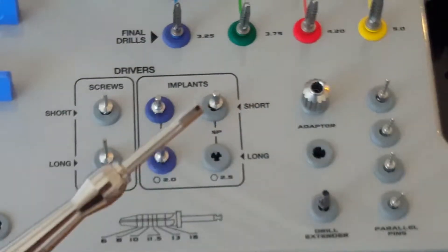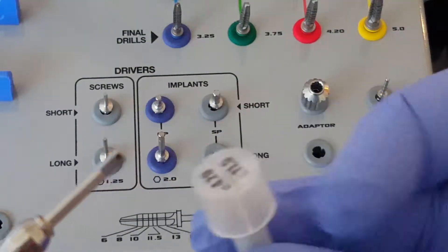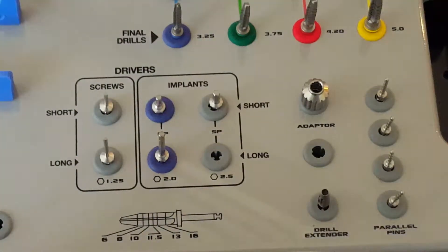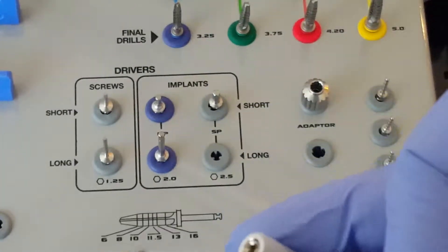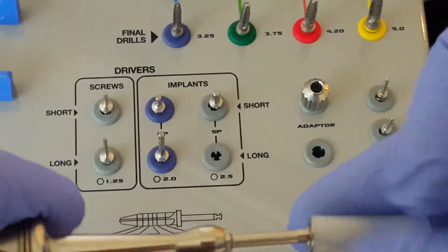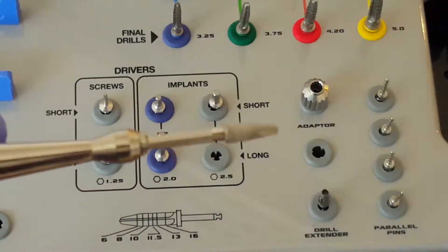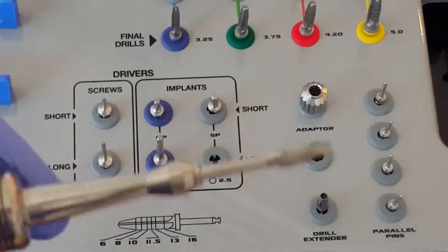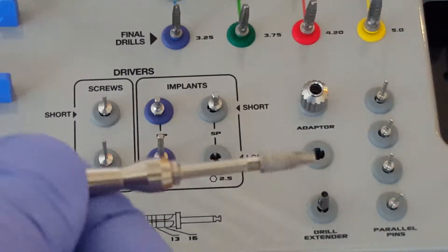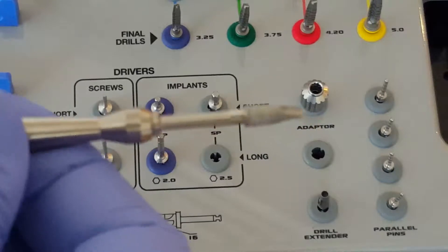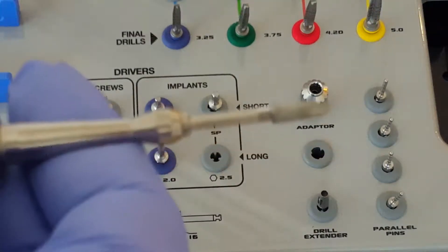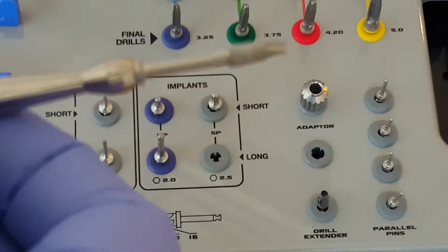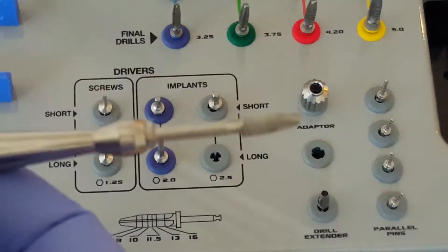So now let's take our vial. I'm going to take off the cover, so we're not touching the implant at all. I'm going to insert the key, insertion key inside, and remove it. Again, securely in place, and this can be rotated. You can hand adjust and hand place the implants using the hand driver, which is very nice, especially when placing implants in the anterior maxilla.